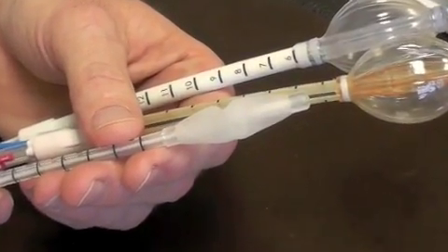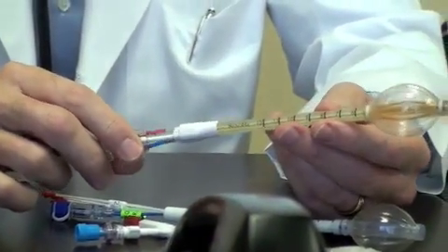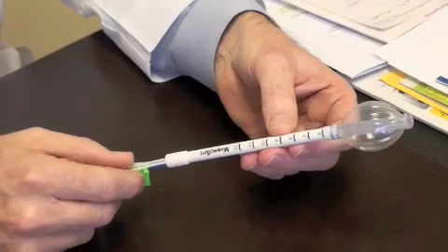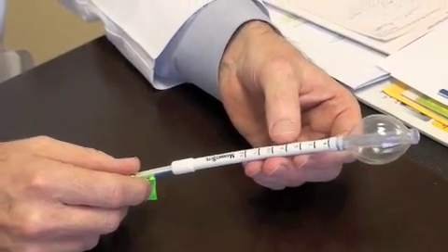These balloons here are a selection of the balloons that we've used in the last few years. This is a brand new catheter that has recently been available to the physicians at Jupiter Medical Center, including myself.